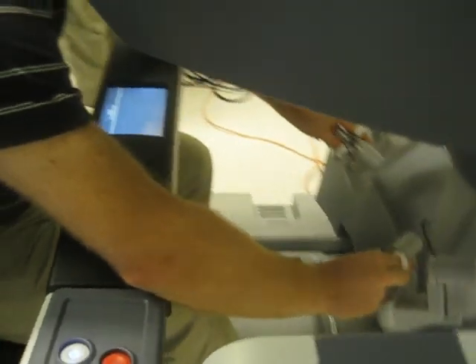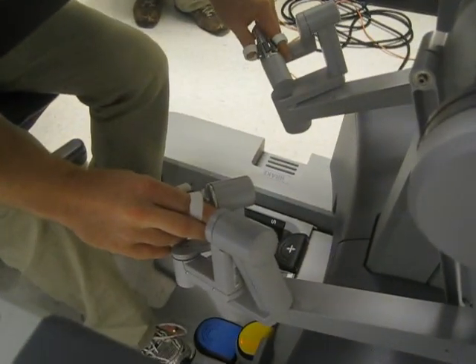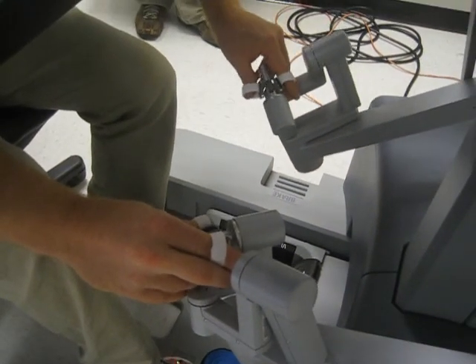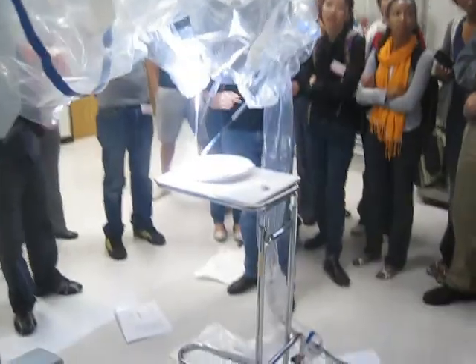He's got this really long instrument right now. I'm going to take his hand and pull away from the hand — and I lost the tool. It's going to say it remembers that. This is a smaller instrument, so it goes further in.